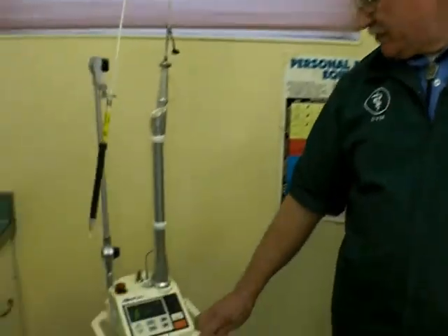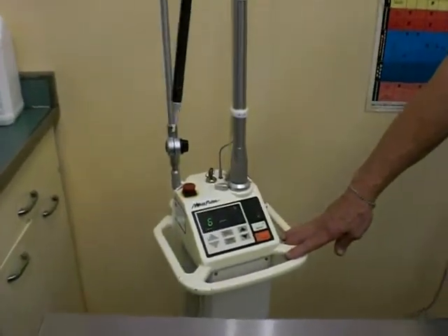Hi, I'm Dr. Hendrickson from Hillchester Hospital for Animals. Today I'm going to talk a little bit about our laser equipment and give you an introduction to what laser surgery is all about. This is a Nova Pulse laser surgery apparatus.